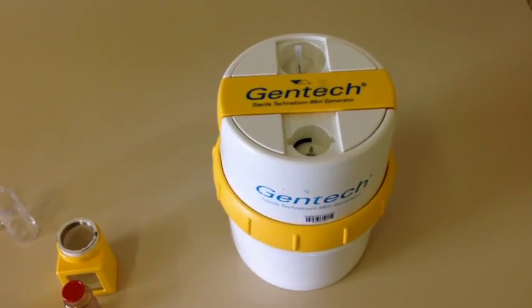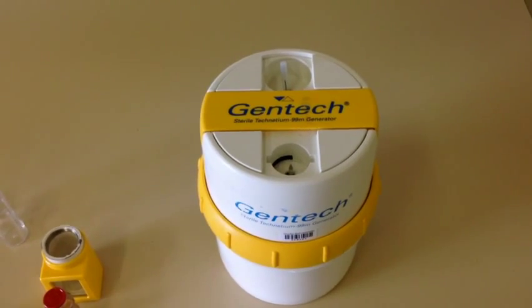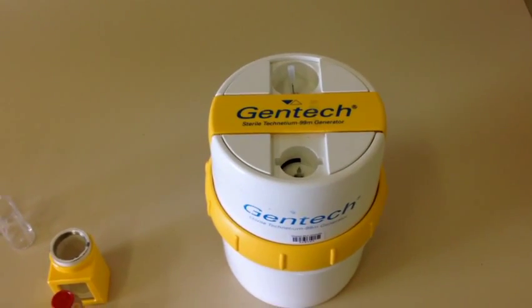So this is the dry generator system. You can see it's called Gentech, produced by Ansto. We call it the new system, but it's been around for quite a few years.